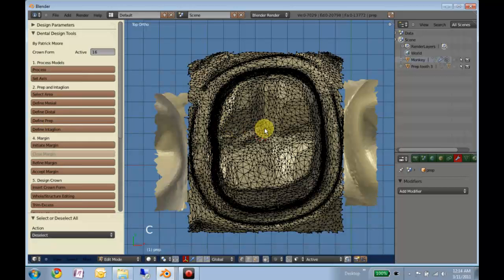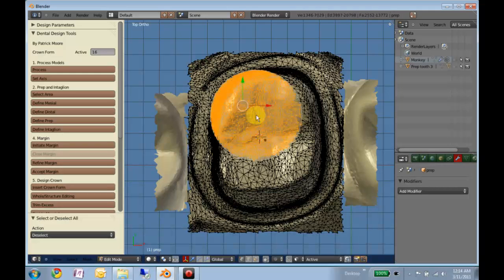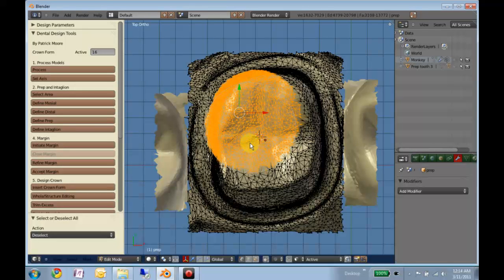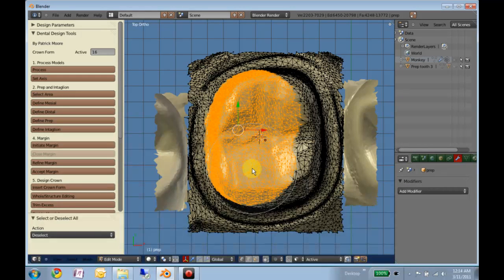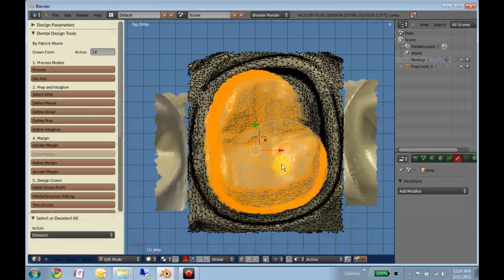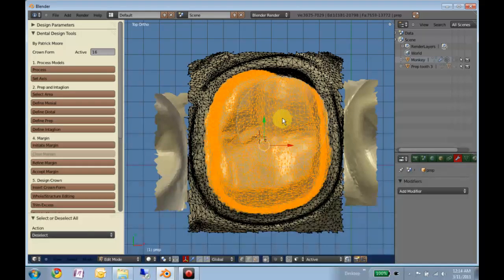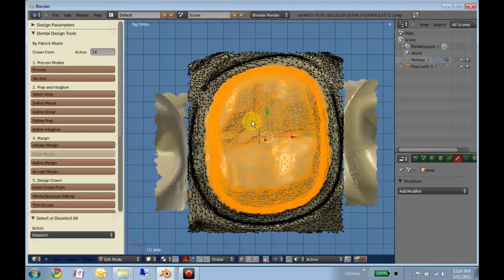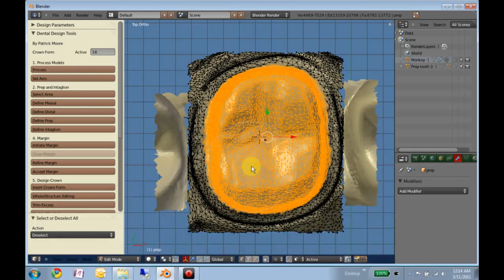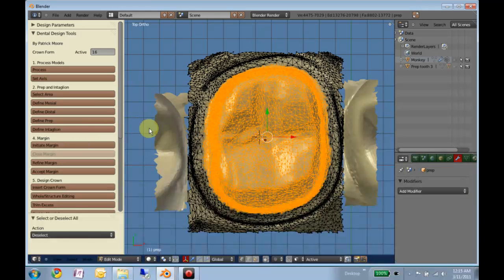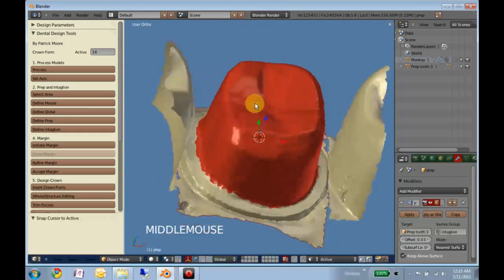Alright, final step. And this is the area where our cement gap will be formed. Right-click to finish circle selecting. Alright.